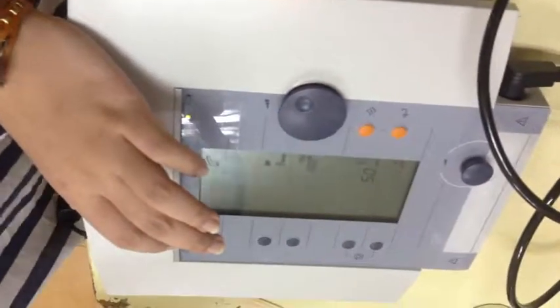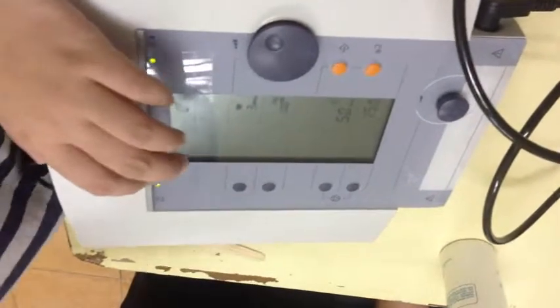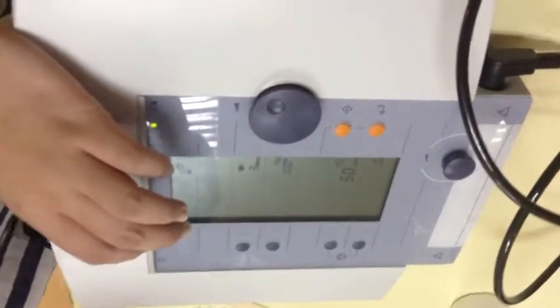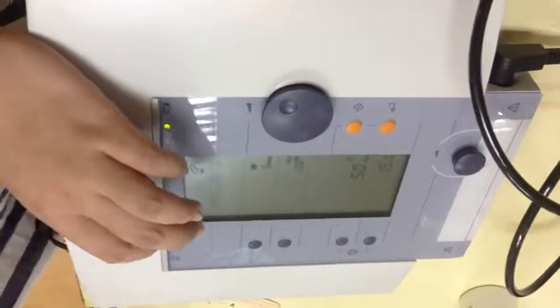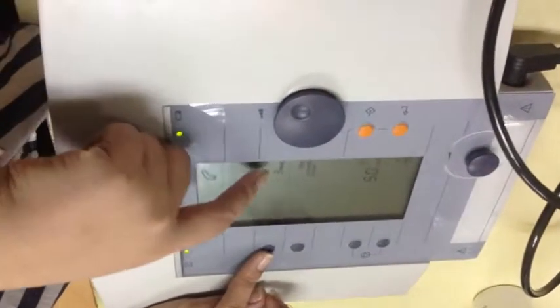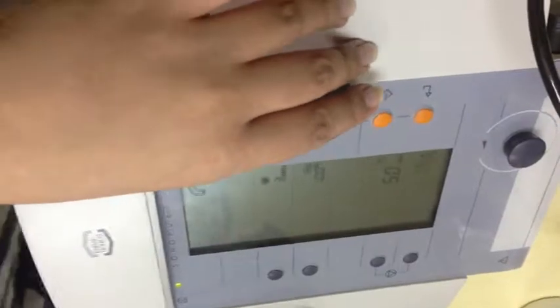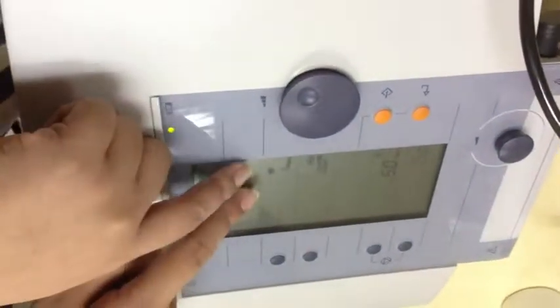So, for example, you're going to treat, halimbawa, low back. Okay, so kung lumbar area yan, para lumbars yung i-ultrasound mo, then most likely you will be using the lower frequency, so 1 MHz. Halimbawa, 1 MHz yung gusto nyo, so you press the button na katapat nung frequency, okay? And then magbiblink siya, meaning yun yung adjustable na parameter, and then you use your big knob to adjust. Okay, so you just choose 1 or 3, depende kung saang area kayo mag-apply ng ultrasound. For example, let's go with 1 MHz.